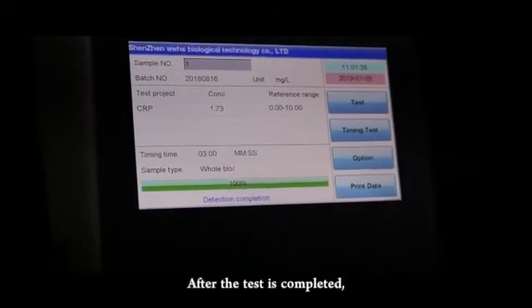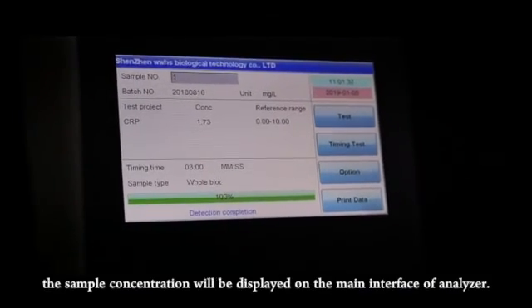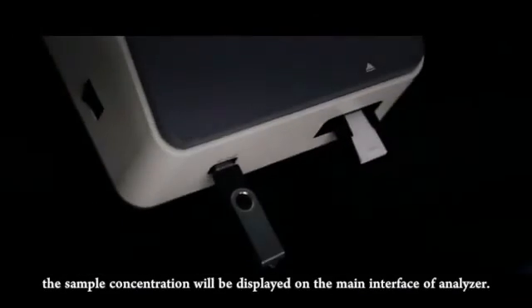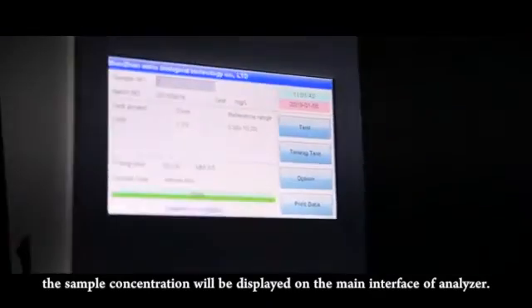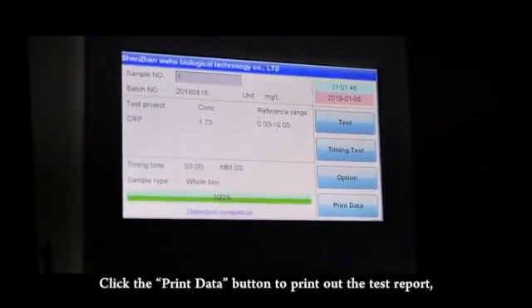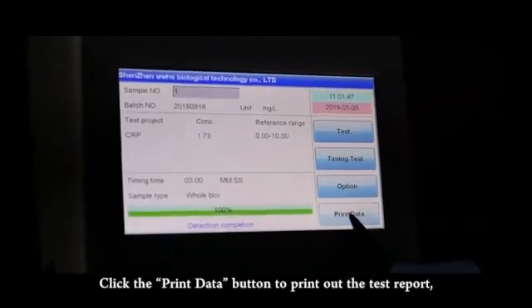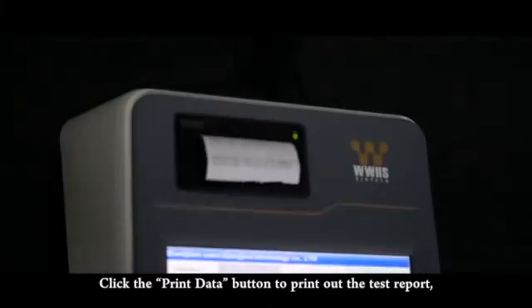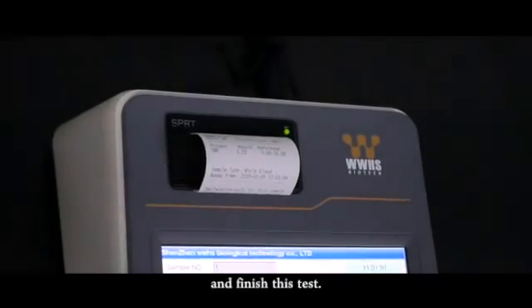After the test is completed, the sample concentration will be displayed on the main interface of analyzer. Click the print data button to print out the test report and finish this test.